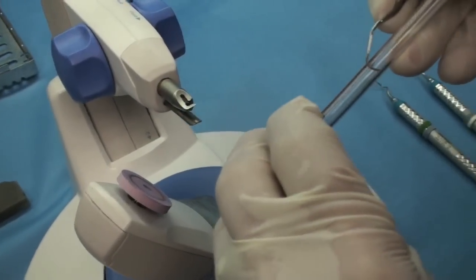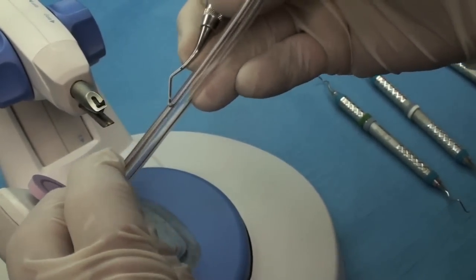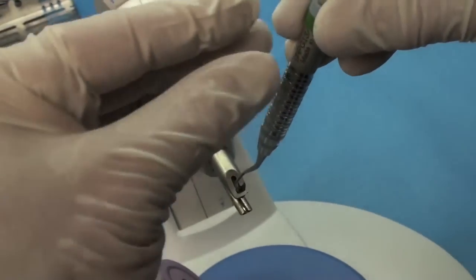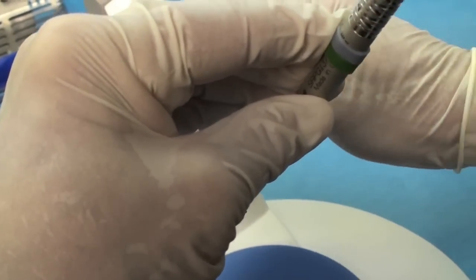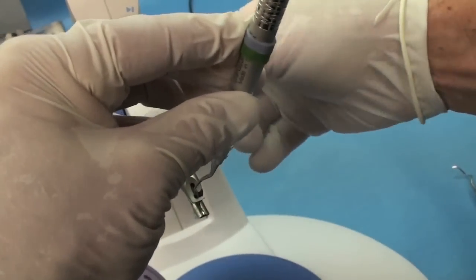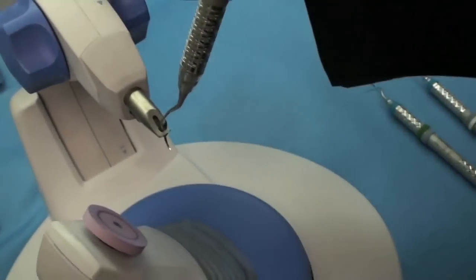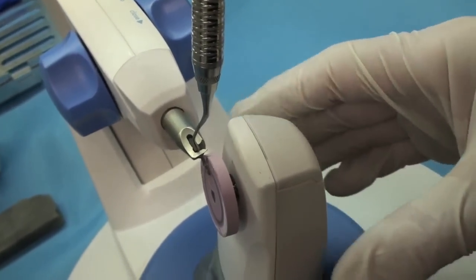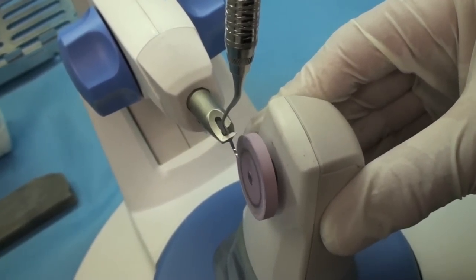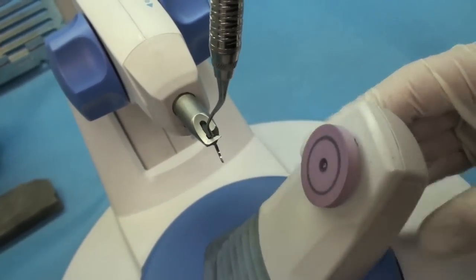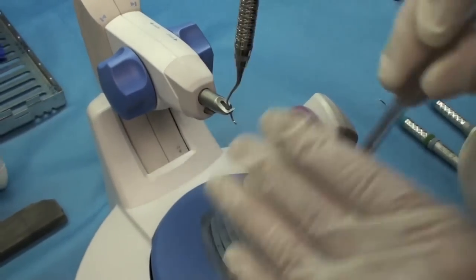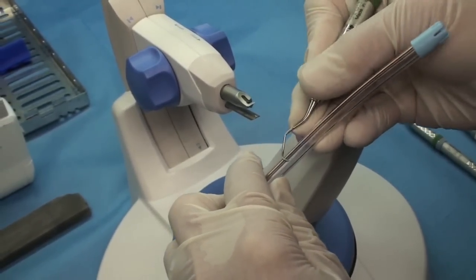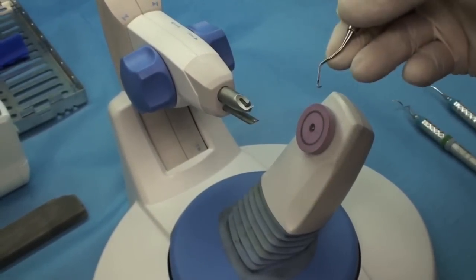Then let's check the other side. Not all the way sharp, so we want it a little sharper. Same thing. You put the instrument in all the way to the back, the tip back. You close it down. Move just a little. You've got to hold it. There you go. And the blade is on the side. So I'm going to put it down to a two. I'm standing up and over the edge, so I can make sure it's perfectly flat. Do that nice ping, so it's really sticking. So that's nice and sharp.